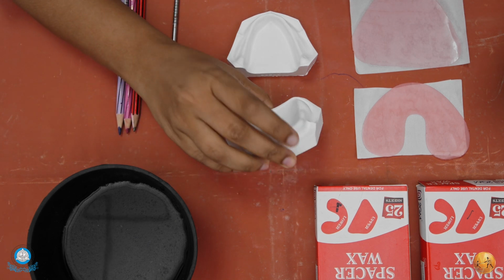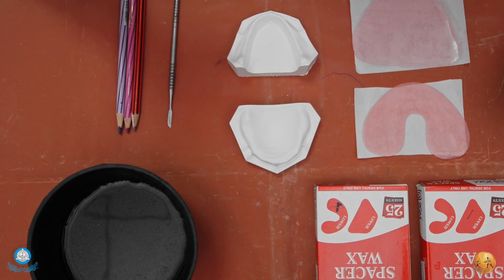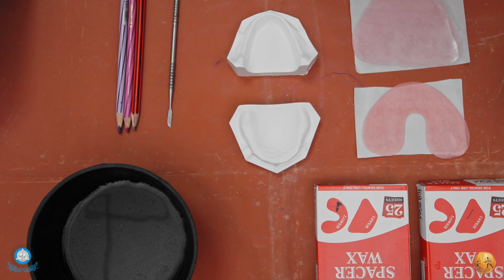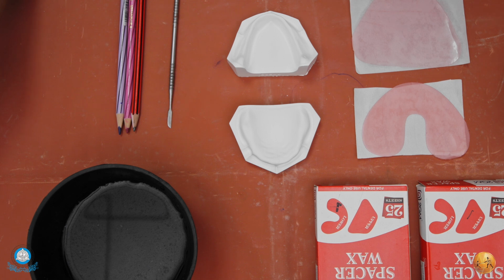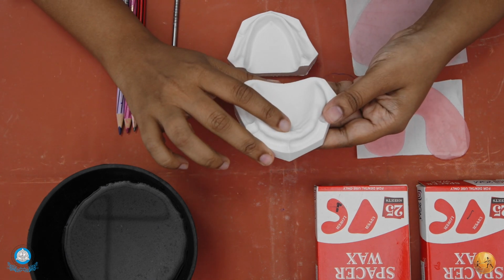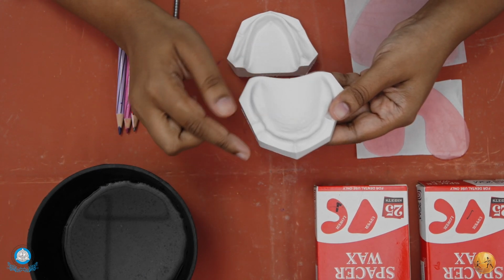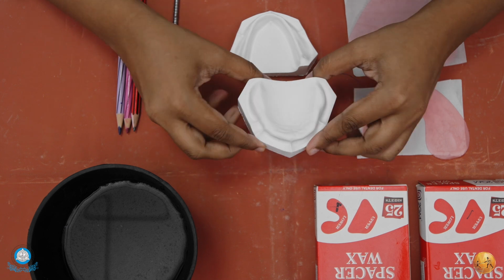Here we are going to see how the actual spacer technique is. When it comes to the technique of the spacers, a lot of authors have given a lot of techniques, like full spacer, partial spacer which contains I and T spacer, Boucher, Morrow, Rudd and Rhodes, Sherry, then Halperin, Roy, McGregor, Neal, Hartwell and Sheldon. All these techniques need to be selected according to the condition of the arch of your patient. If the rugae area and the incisive papilla are prominent, you are supposed to use a double spacer, in which first the half spacer will come, on which there will be a full spacer.